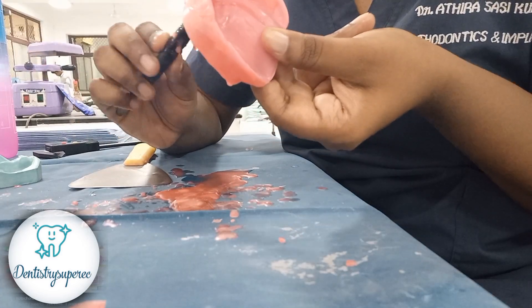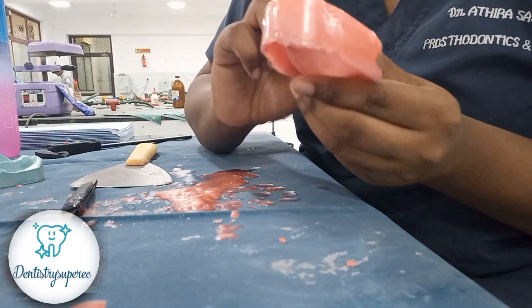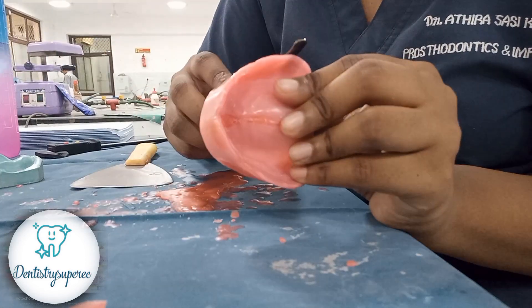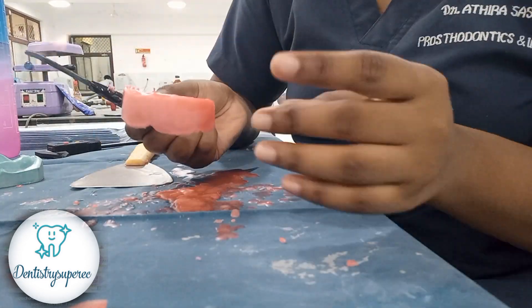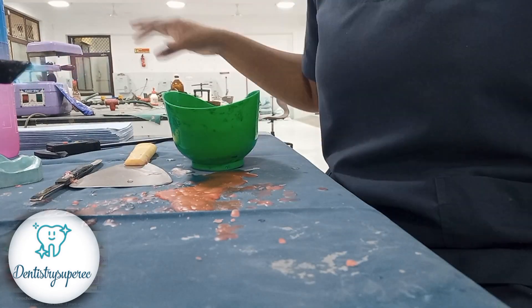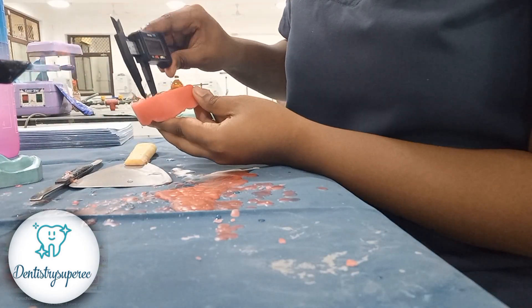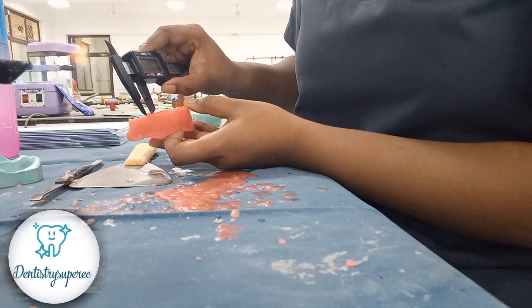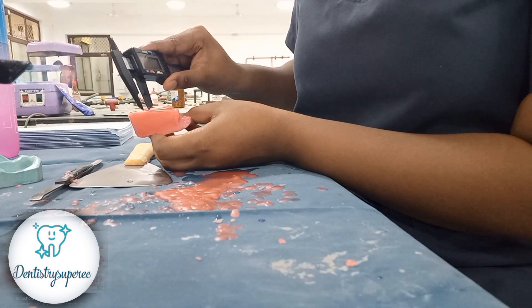When smoothing off, one side should be done in a single stroke. Don't do it little by little, because wax cools off quickly and will give lines. One smooth stroke per side gives a uniform even look. On the lingual side, check that the occlusal rim thickness is not over-reduced. For marking thickness: anteriorly four to six mm, in the middle region six to eight mm, and toward the posterior eight to ten mm.